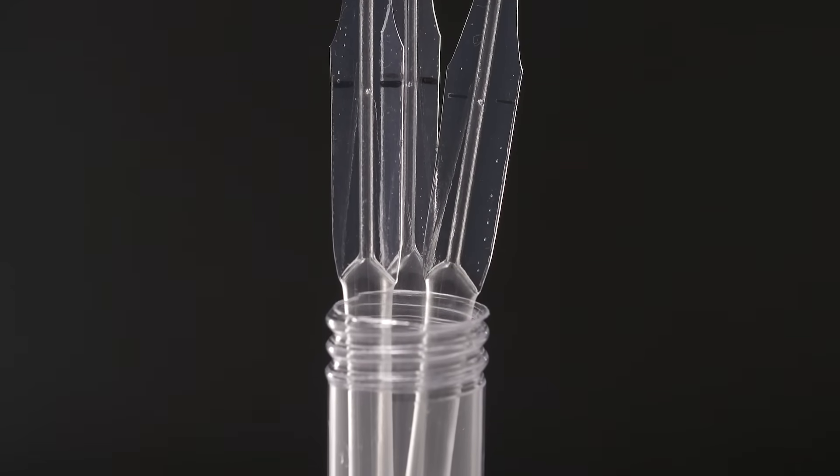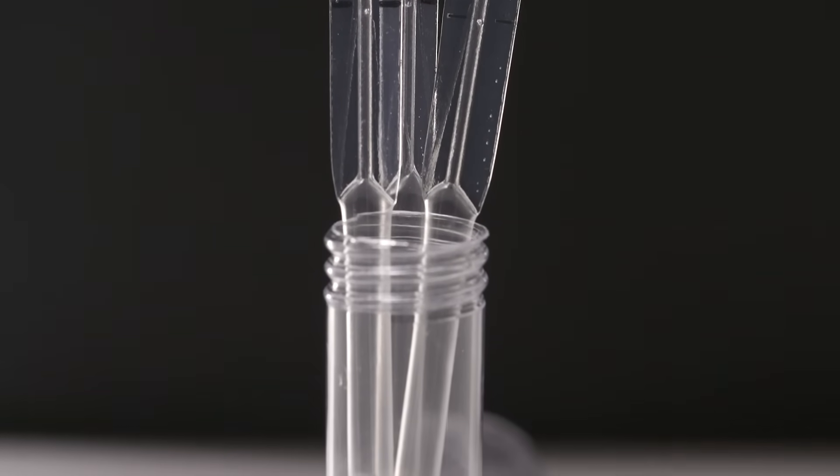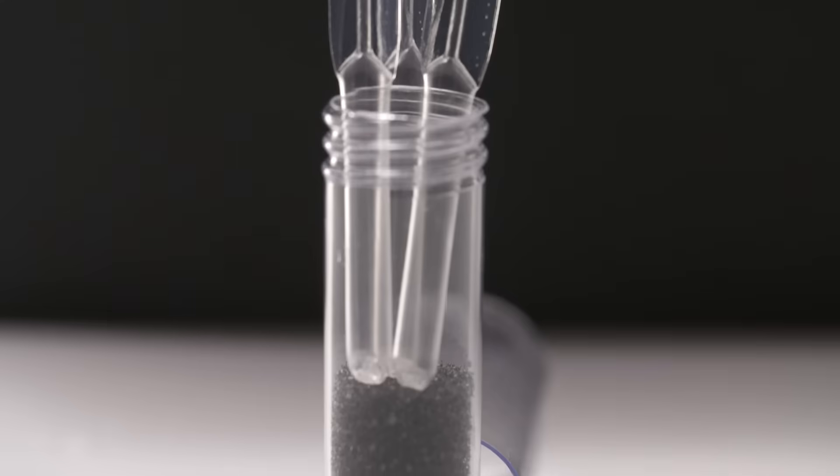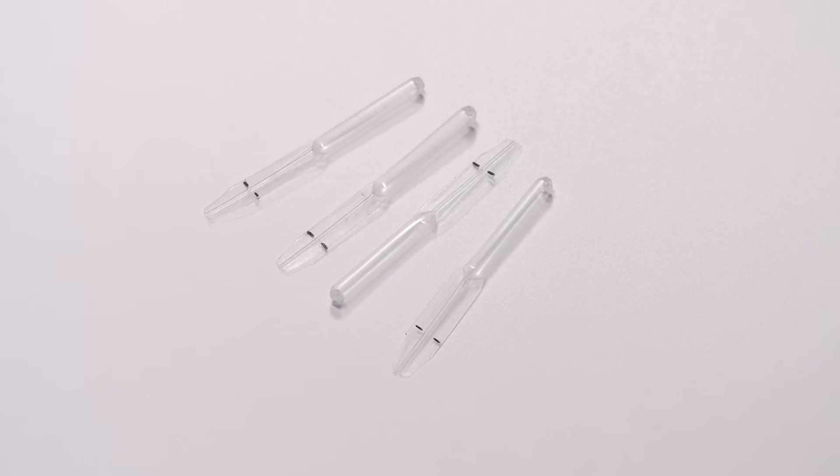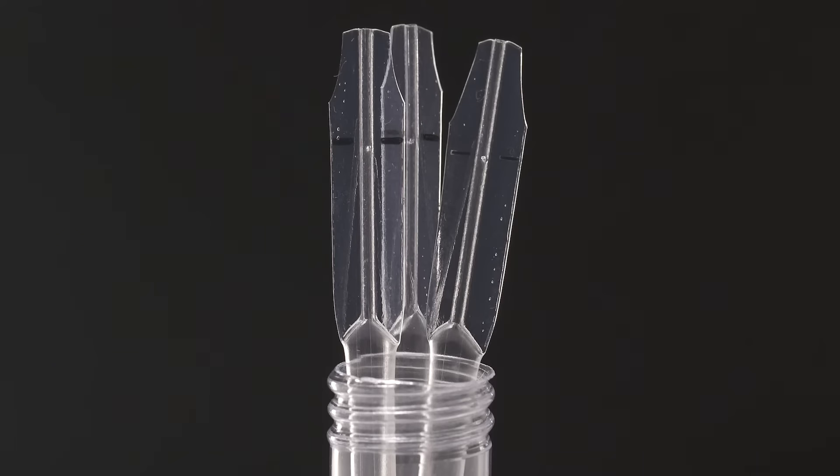Microsafe is a single-use, one-piece plastic capillary tube used to collect and dispense an accurate volume of finger stick whole blood. Available volumes range from 5 to 80 microliters.